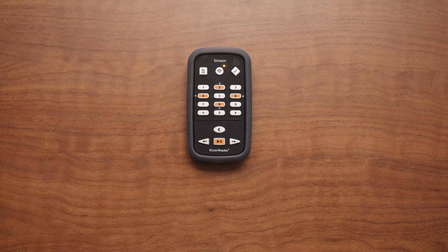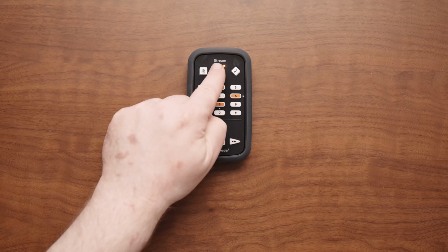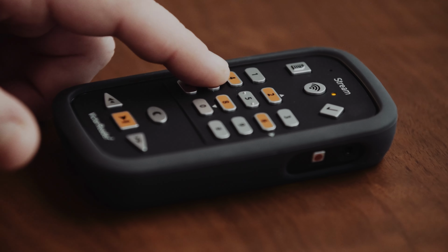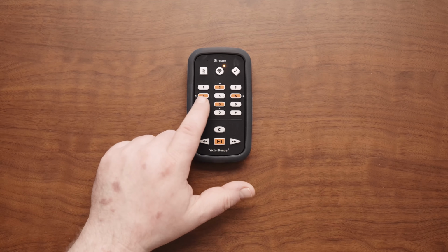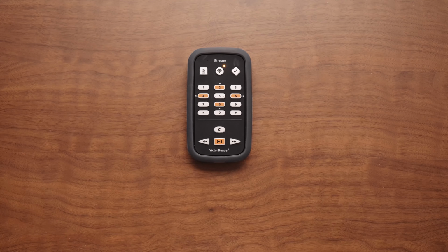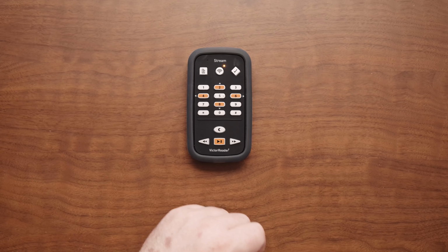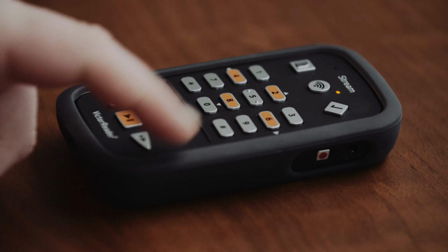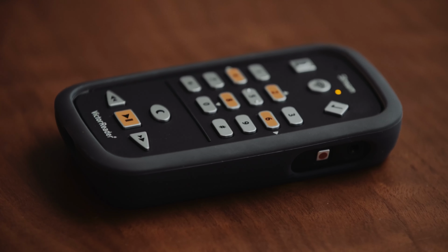Enabling NLS BARD services to the VRS. 1. Make sure you are connected to Wi-Fi and the airplane mode is off. 2. Go to the online bookcase, Online button. 3. Press the menu key 7 repeatedly until you access the NLS BARD menu. 4. You should hear Add NLS BARD Services. If not, press the scroll key 8 until you find this option. 5. Press the confirm key #.